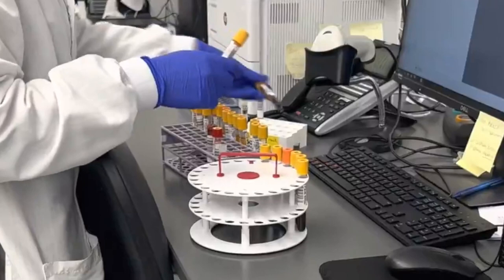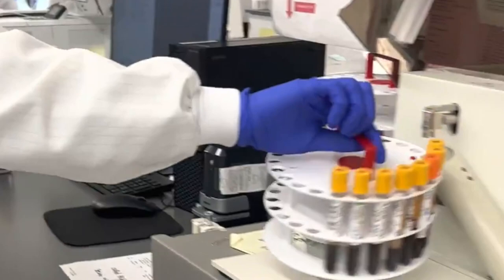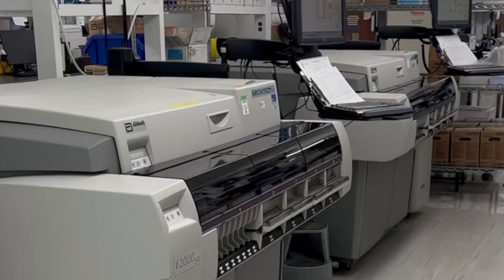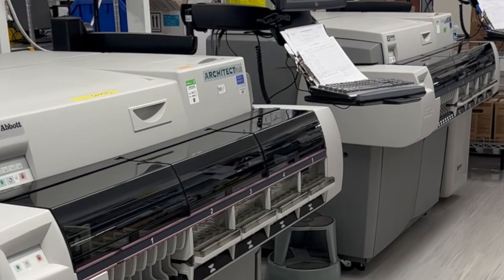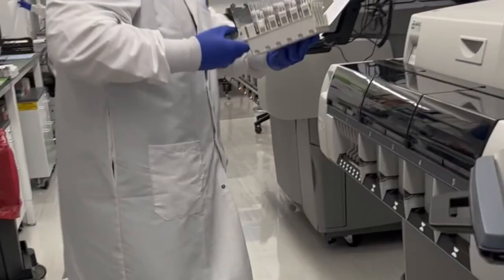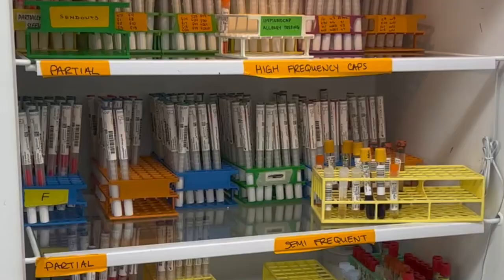Certain infectious diseases and autoimmune diseases are diagnosed using serological and immunological methods. Blood and serum samples are processed for detection of antibodies or antigens to particular pathogens. The Architect system, an automated immunoassay analyzer, is used to detect antibodies to syphilis, hepatitis A, B, and C viruses, and antigen detection of hepatitis B virus. This instrument is also used for fourth generation HIV testing, a combination antibody and antigen assay that allows for early detection of HIV infection.